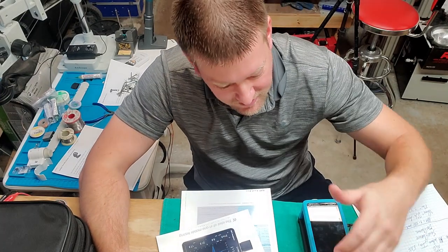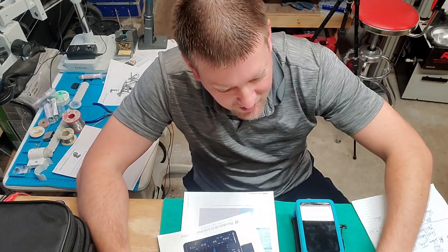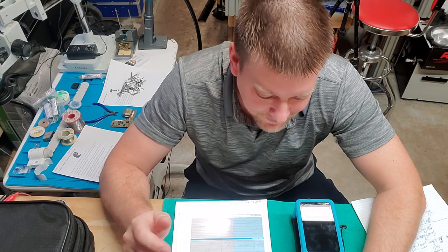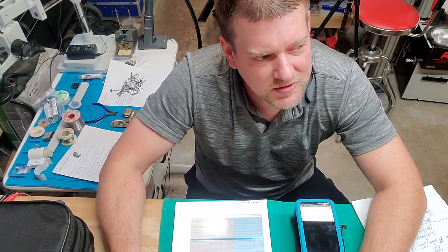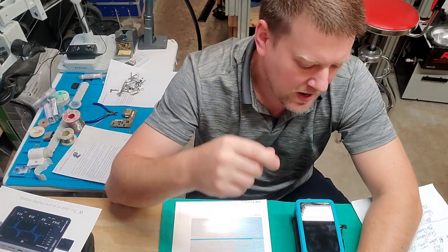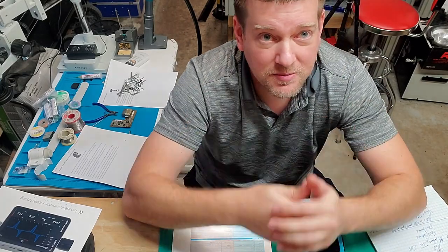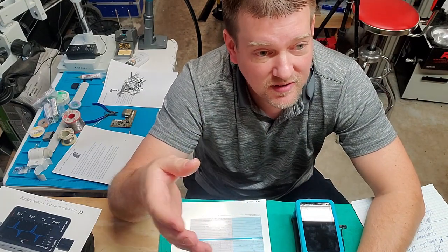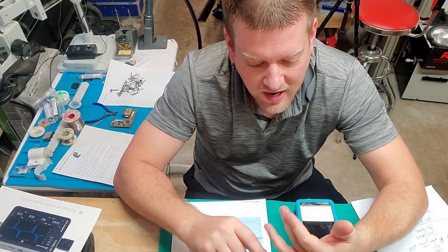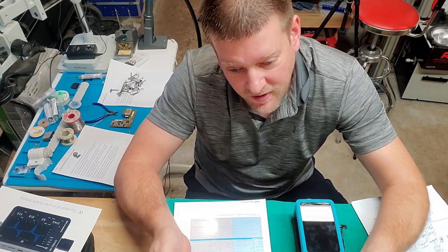This is a device that can be sold around the world and there are standards on the other side of the world that we're never going to see here in the United States. There's only a couple standards that we're going to use. It also does statistical evaluations and analysis. There is a little app store for this device where you can download different apps — really templates for testing different types of ventilators, blenders, flow meters, BiPAP, CPAP.